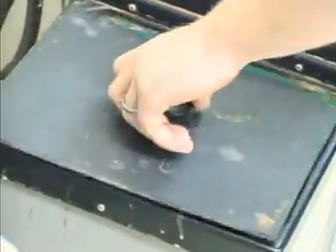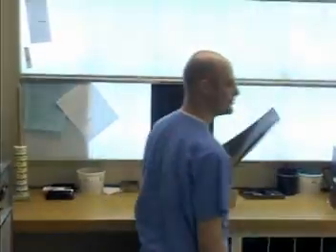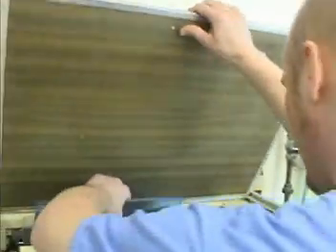Let's look at this corrosion. Still waiting for that first film. Oh, here we go. First one — great, it's ruined. Where's the other one? Oh boy. Here we go again. Got the film stuck in here. Film's ruined.